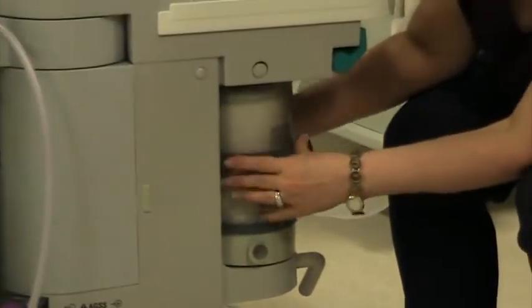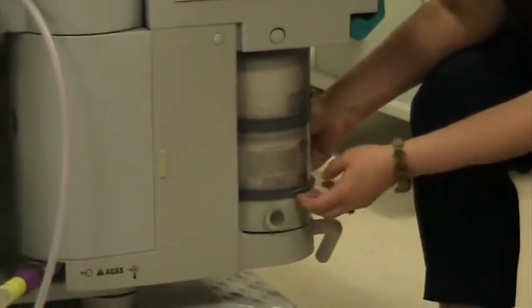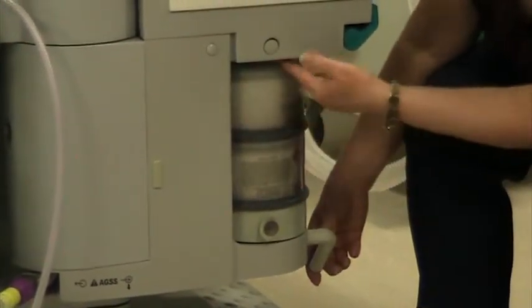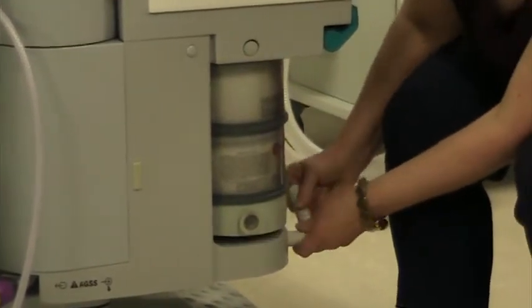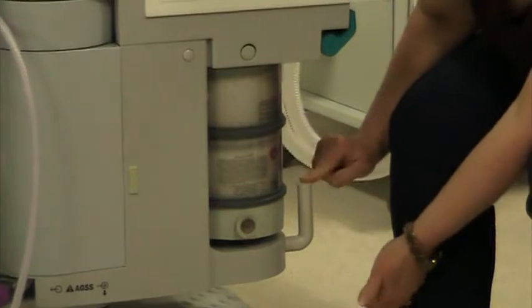This will go here, and you want to make sure that this is all lined up ready to go because there is another rubber ring right up here. Put that up and let it go back in.